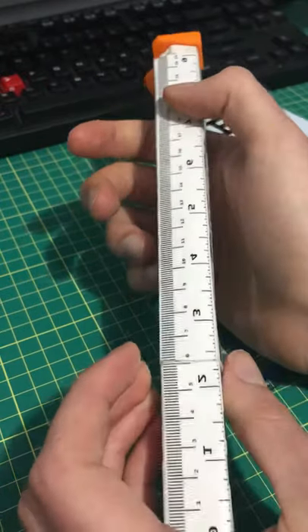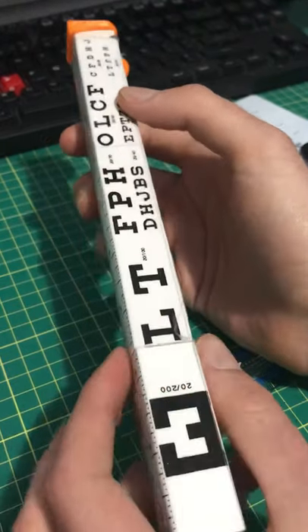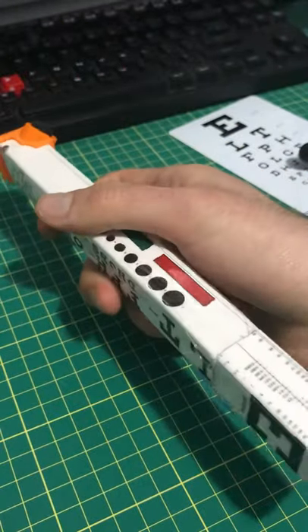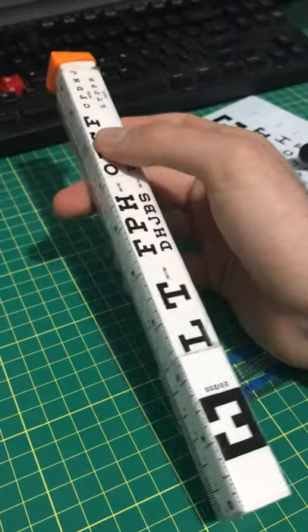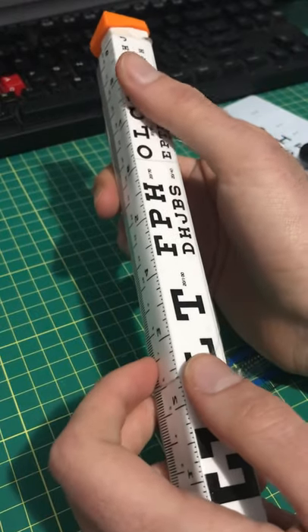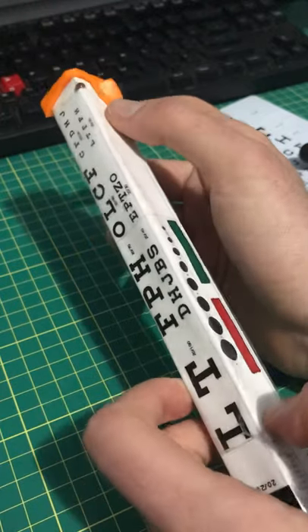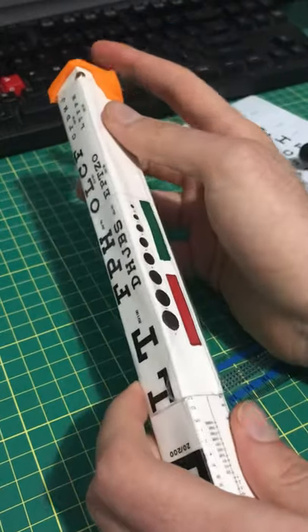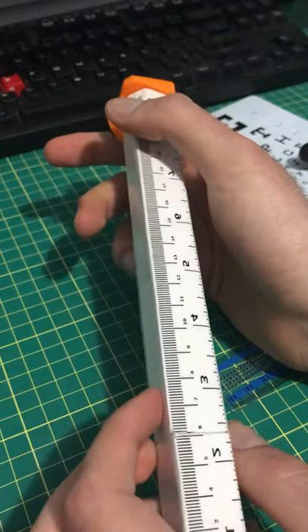And it will only be more convenient. This fits in the pocket of a lab coat or a Patagonia fleece — I've tested both. It's pretty lightweight, but with just enough heft so it actually works as a reflex hammer, because the batteries are right here with the light. And this is only version one — it's far from finished. I think I figured out a way to maybe fit an ophthalmoscope in it in about the same form factor, so it could be even more useful than just a pen light, but that requires a bit more work — I need to source some lenses.